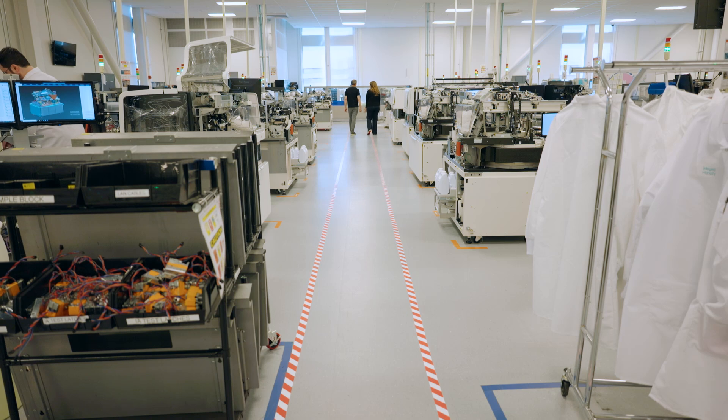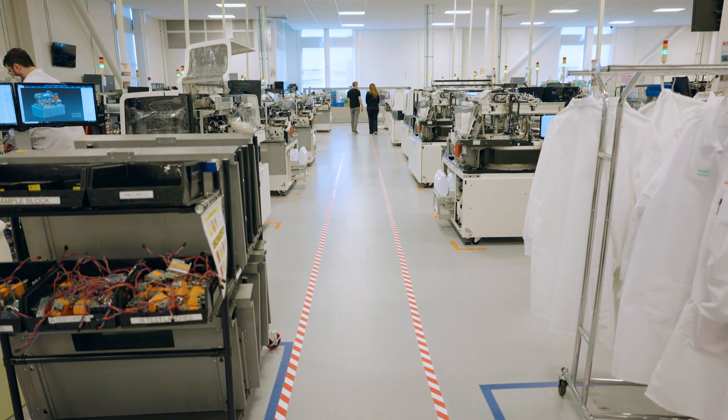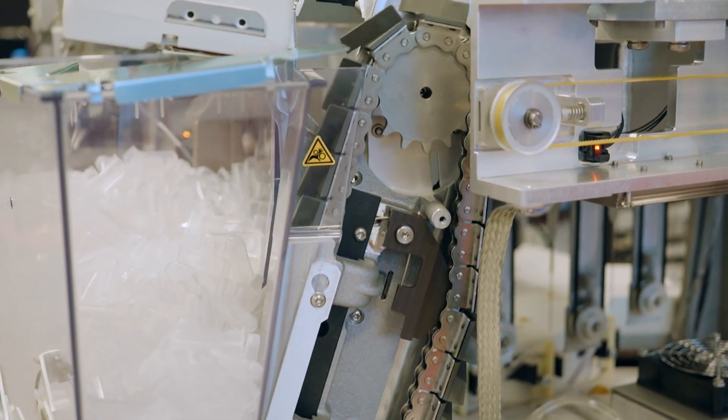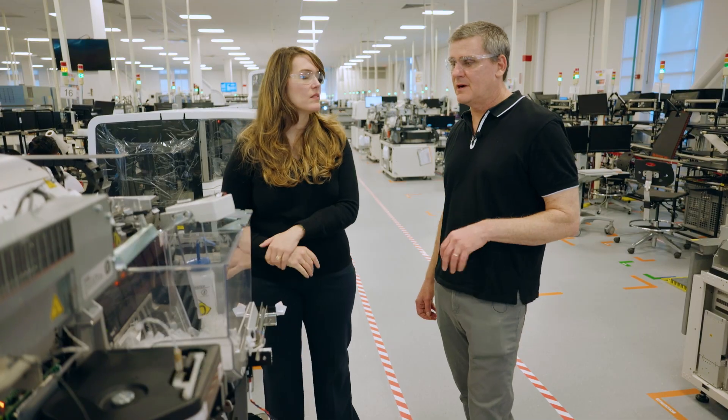Well, that's a lot to consider. It's a lot. And it also has to look good. Of course. You would never think that this was all happening underneath the hood. I think that means we did our job well.